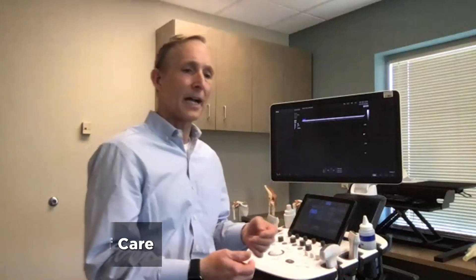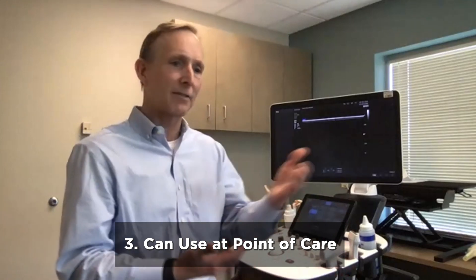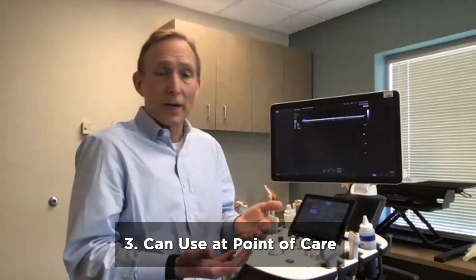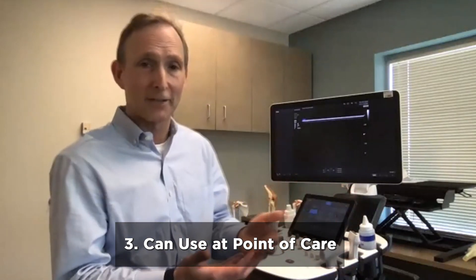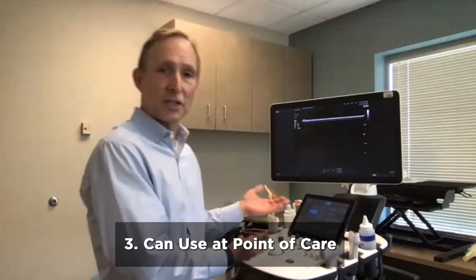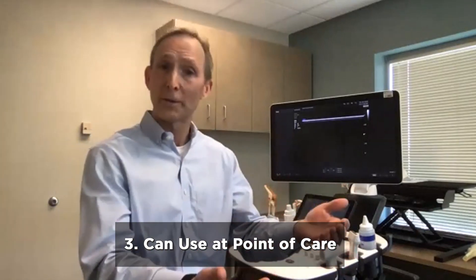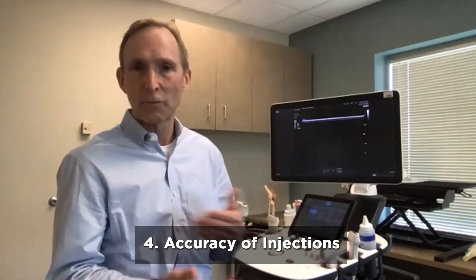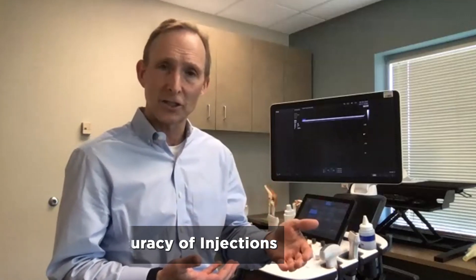Third, I can utilize it at the point of care. A patient comes in with a specific complaint, and I can choose right away to examine whatever they're complaining of with my machine that's right here — I don't need to schedule another visit or another appointment. And lastly, it can help with the accuracy of performing certain procedures, specifically injections into joints.